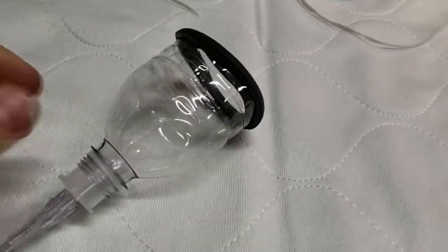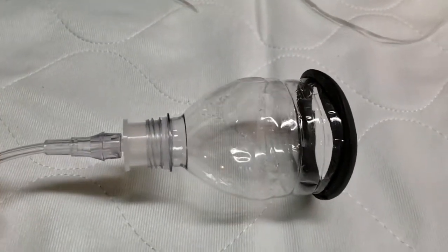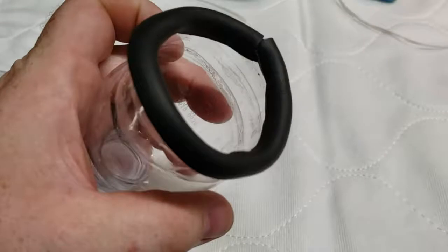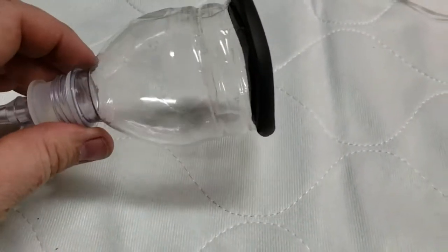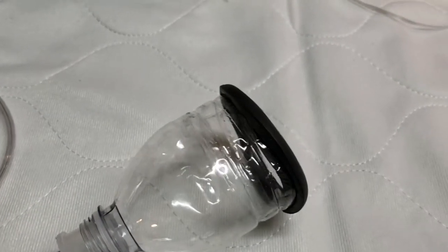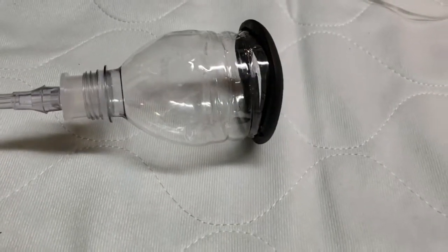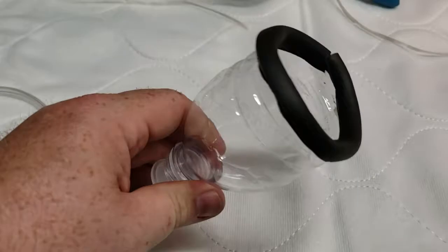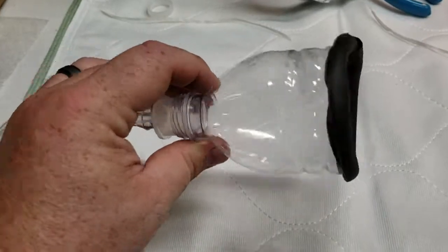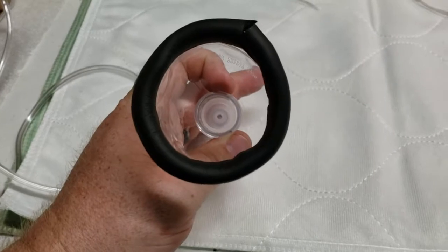You can use this for a puppy, kitten, or small animal struggling, and hook the other end into your concentrator or tank. You can use this inside of an incubator — one of our Lifeline Pet Supplies incubators or the ARCOM incubator. The Lifeline Pet Supplies incubator has a direct connection inside that will allow you to hook up a short piece of oxygen tubing to the internal connector and run the connection to the concentrator directly from outside, so that you can use this for a direct-to-face application.